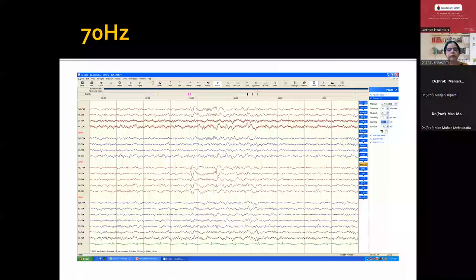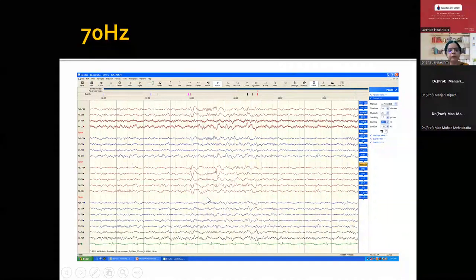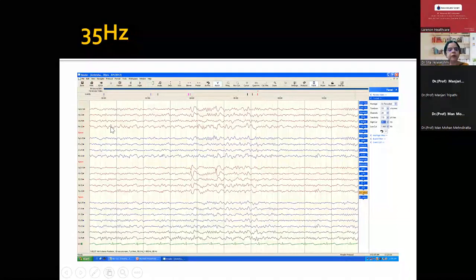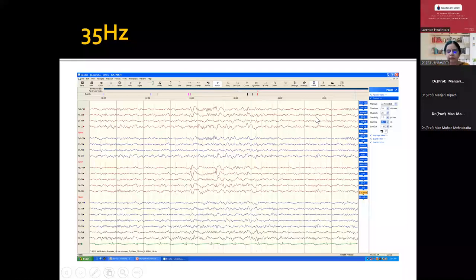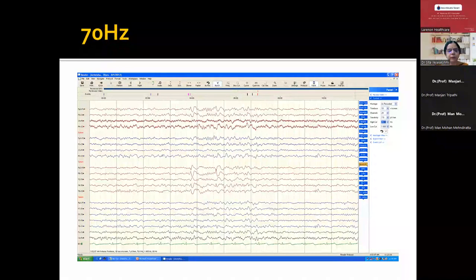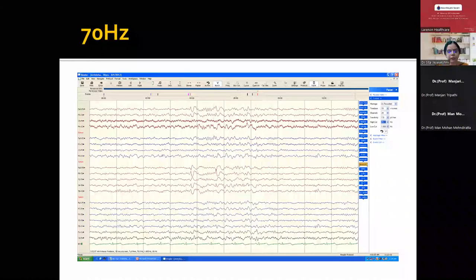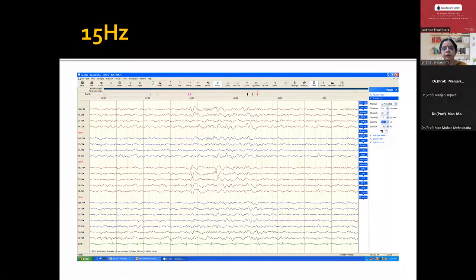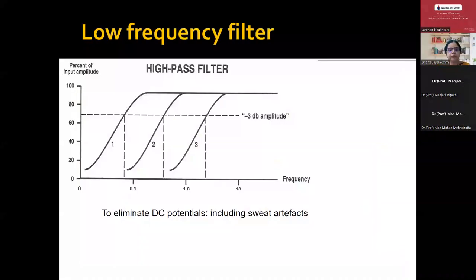This is an EEG recording done at 70 hertz. We are seeing some noise at the P4 electrode because it is the common electrode, but we are seeing the spike coming from Fp2, F8, T4. If you change it to 35 hertz, the noise is gone — and most of the time at 15 hertz it becomes more smooth. But look at the morphology of the spike: at 70 hertz, the spike morphology is very well visible; at 35 hertz, it's reasonably OK; at 15 hertz, the spike has become very smooth and looks like a slow wave. The morphology of important epileptiform discharges changes when you try to make the EEG smooth — we should never do that.